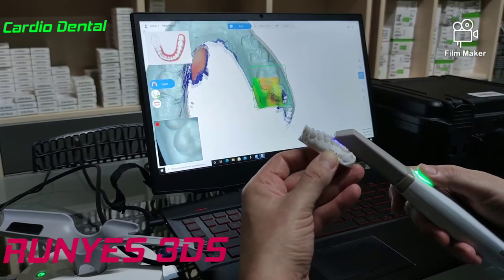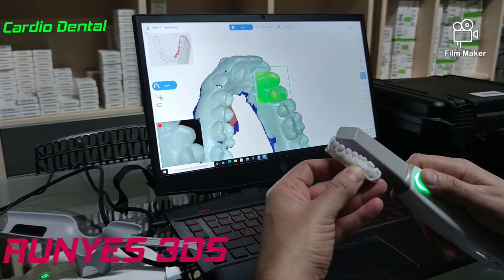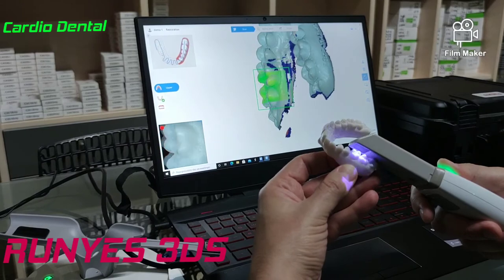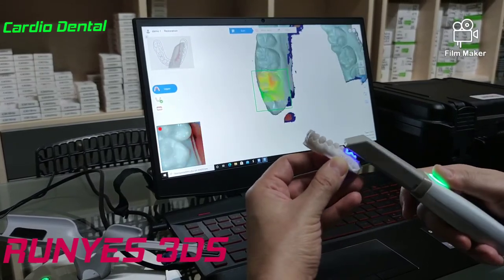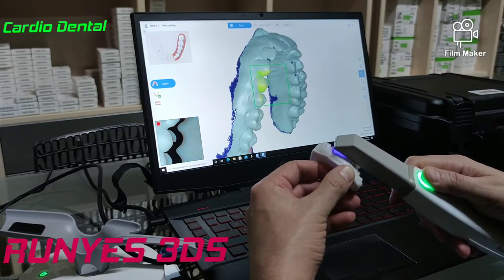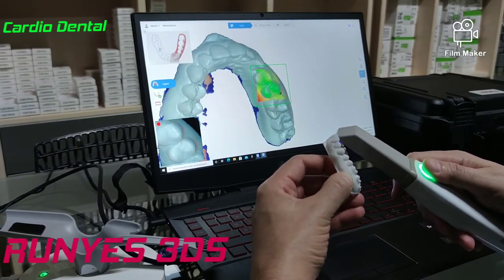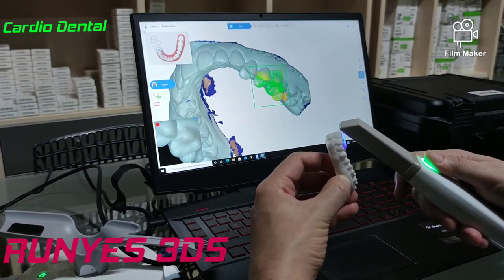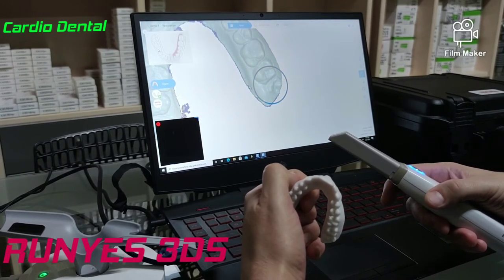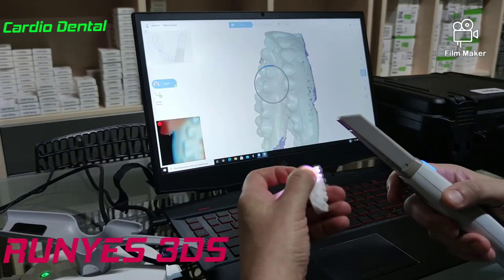Scanning in the mouth is easier because the scanner software is more adapted for the intraoral environment — a little more darkness. Here we have too much light, but I want to capture all the details. If you don't need all the details and just need the occlusion to be good, you can do a scan in thirty seconds. You need to be a little steady. I have scanned everything — I can see a small blue spot, but it's just noise. Corrected in one second.